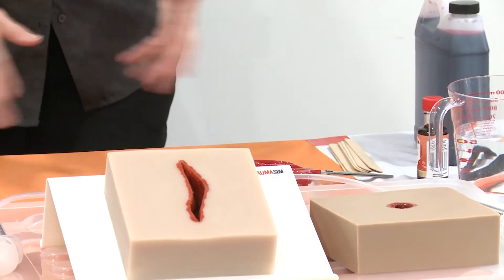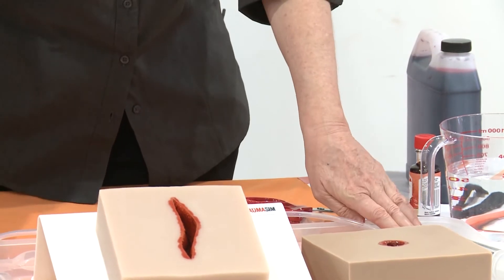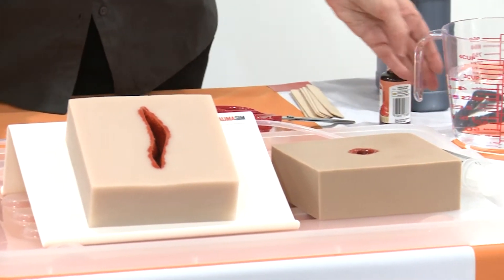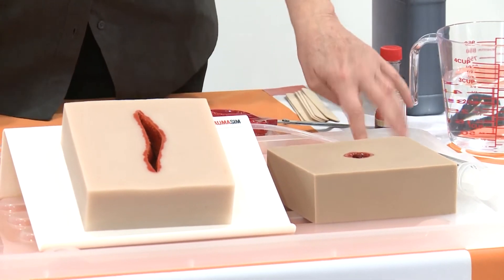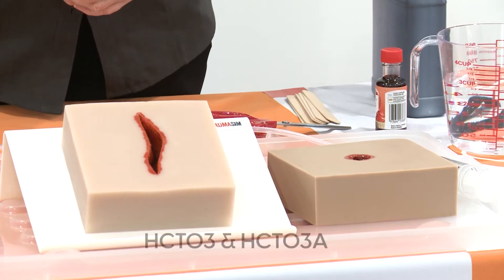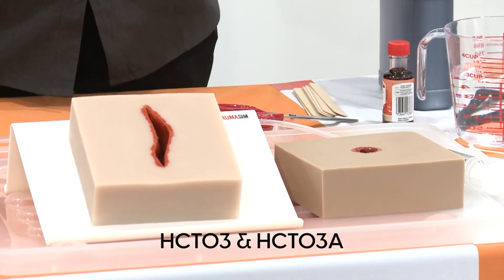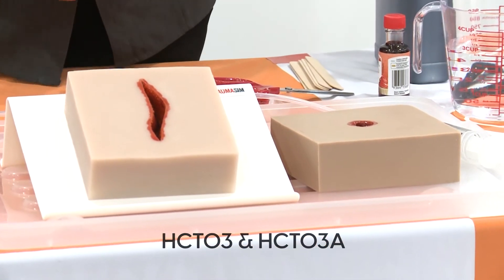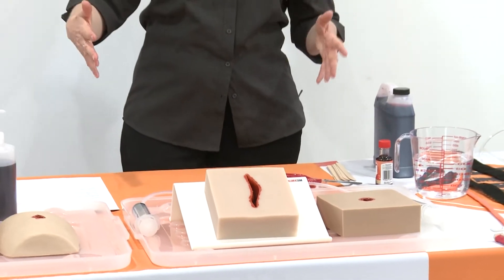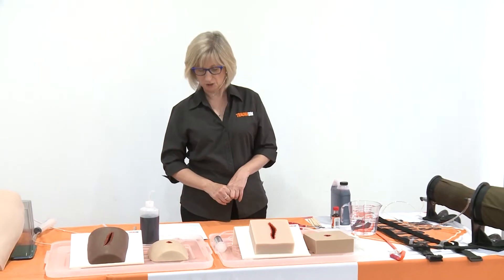If we're setting up to use it, what we would normally do is have something underneath to collect the mess because it is a little bit of a messy situation. We've just used lids of plastic packing containers, but you can put down cheap plastic drop sheets, incontinence blue sheets, towels, anything like that. Or you can do it inside a plastic bucket — plenty of people use square plastic containers and put the whole lot inside there.